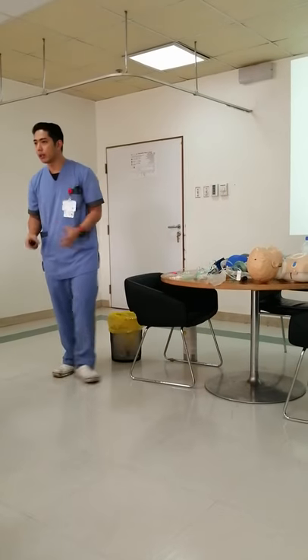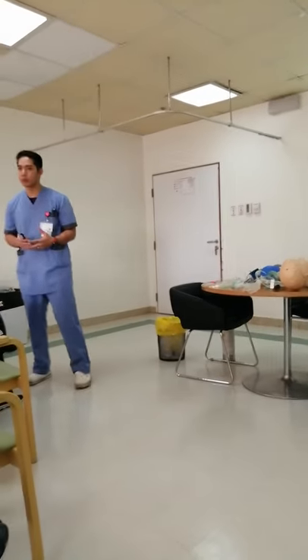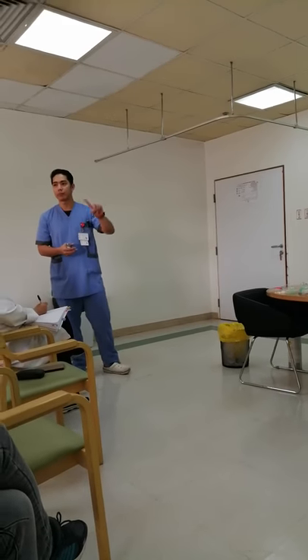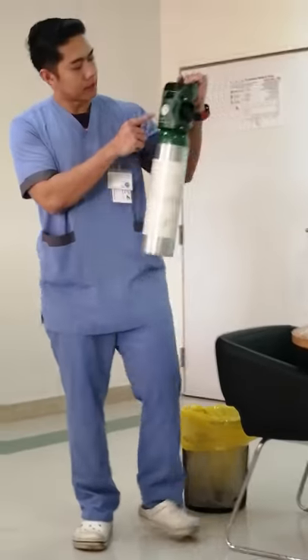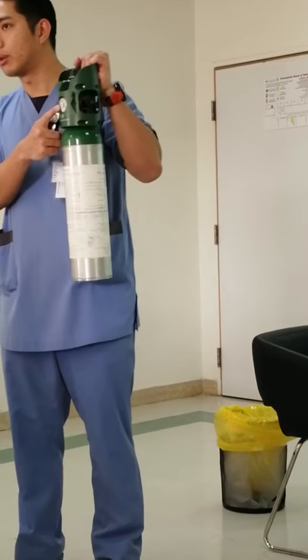If you are in the unit, the first thing you have to do when you need to use the oxygen tank is of course check how much is remaining. For example, if this one is in the red, it's in the red light.